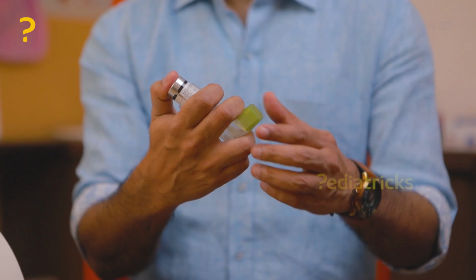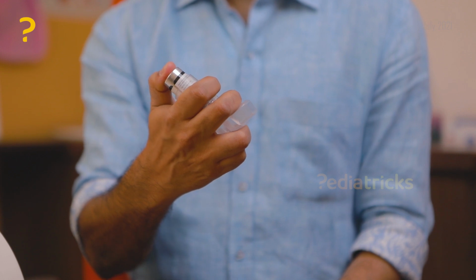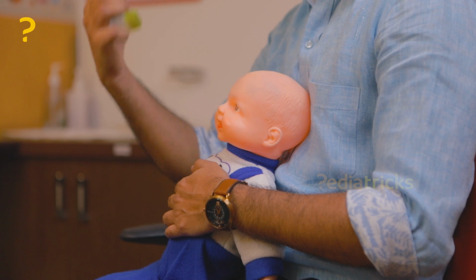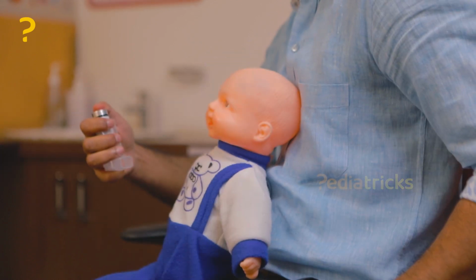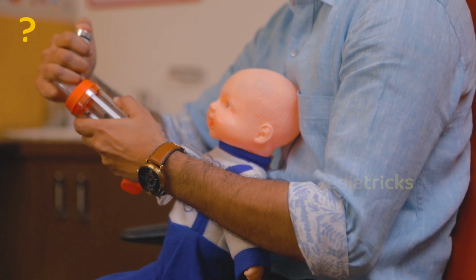Again, while you're using it, you should wash your hands. The first time you're using it, you should prime the inhaler by spraying it 4 times into the air. Before each usage, shake it for 10 seconds. Put the inhaler into the opening at the end of the spacer. Have your child turn their head to the side, ask them to breathe out, and then ask them to close the mouth tightly around the mouthpiece of the spacer.